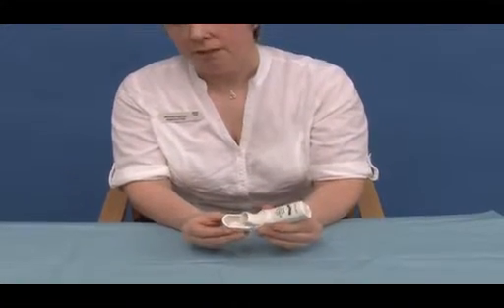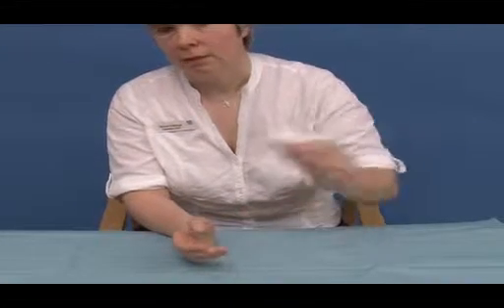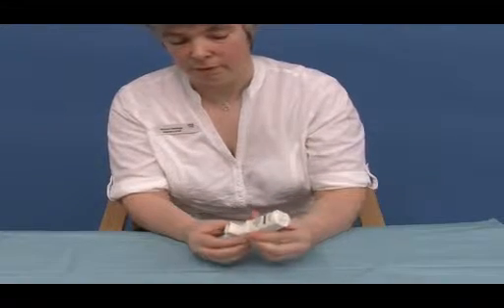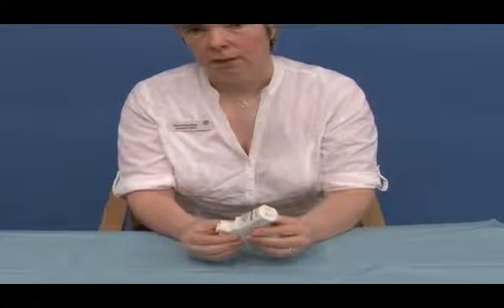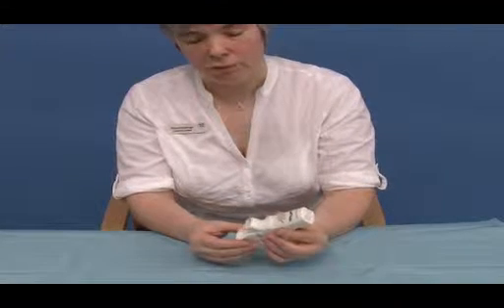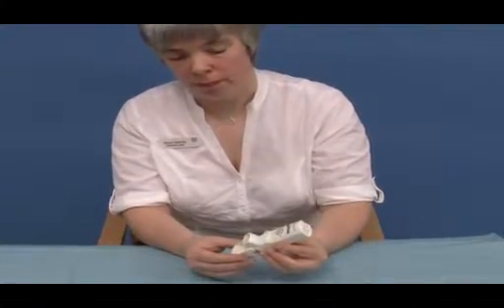If they require to take a second dose, they would close the mouth cover and start the process again to activate the device. Important things to remind the patients: when they hear the puff of the inhaler, they have to carry on breathing in at that point. Many patients do stop, in which case they do not get their dose of medication.